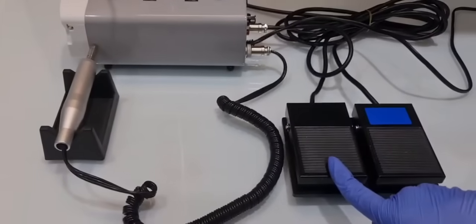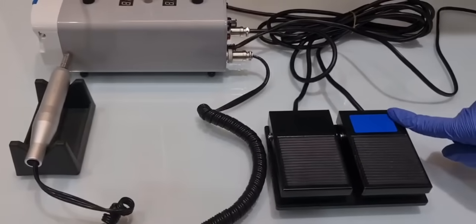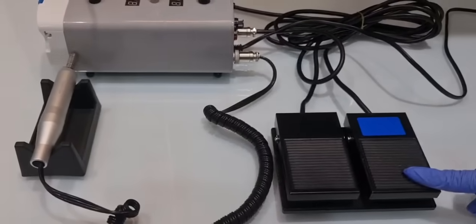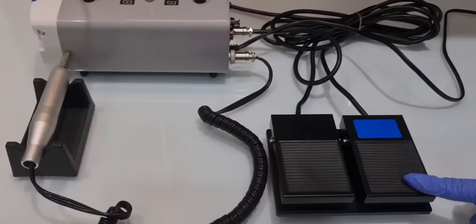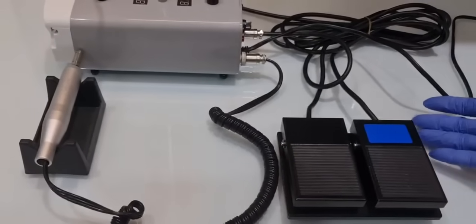This is the one for the motor, and this one which has a blue sticker on it is used for the water pump. The blue sticker signifies that it is used for the water pump.